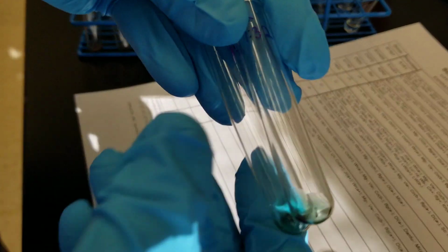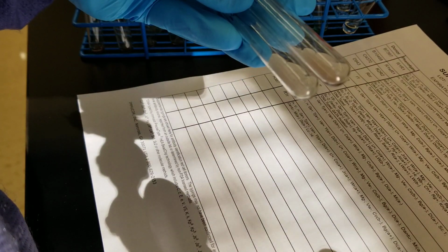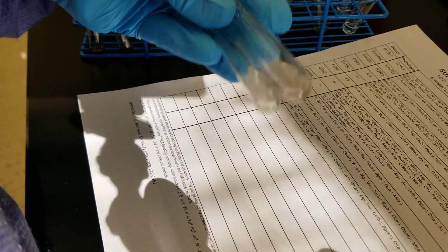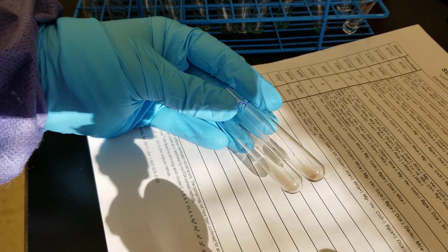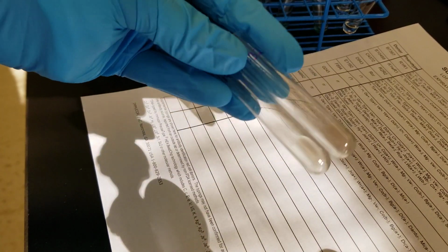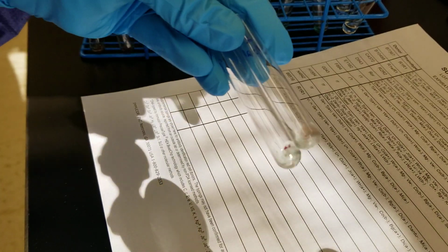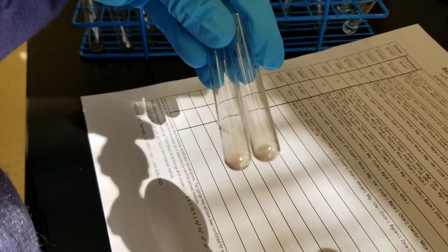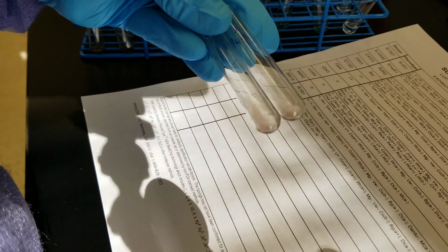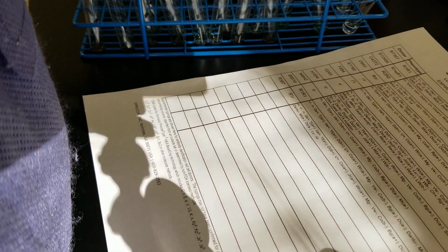All right. So this is 1 in 16 and 1 in 32. They're still positive, but these are all weak. And in order for us to decide if it's clinically significant, well, I mean, it's all clinically significant, but in order to do the titer reading, the highest titer that ends up being a 1+ is what you end up using as the titer level. And these are all just weak. Ridiculous. Utterly ridiculous. What the crap is going on?